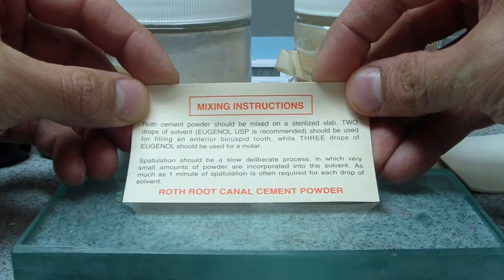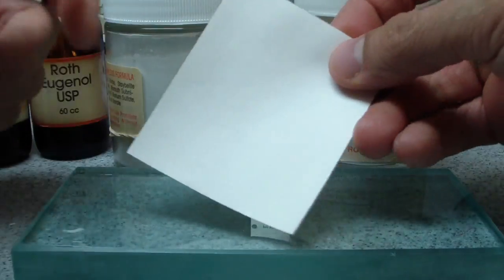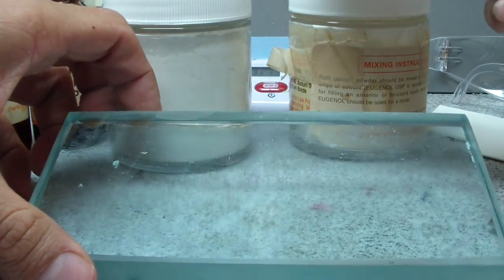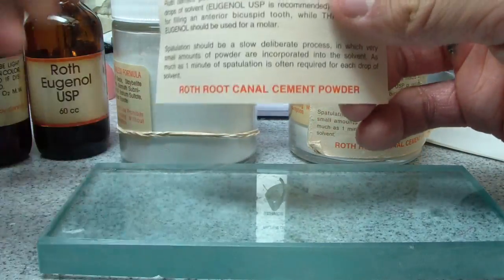Powder should be mixed on a sterilized slab. So I have a glass slab. I mean, most of the time reality hits, we'll be using a pad. But I went and found—I was curious to see if we have any glass slabs in the house, and we do.